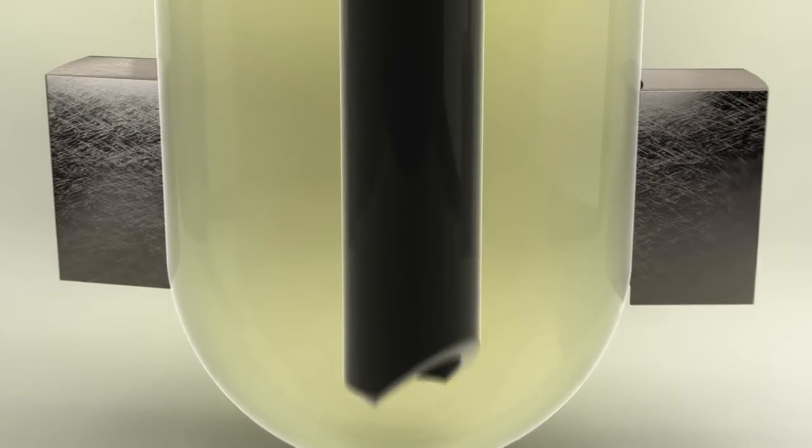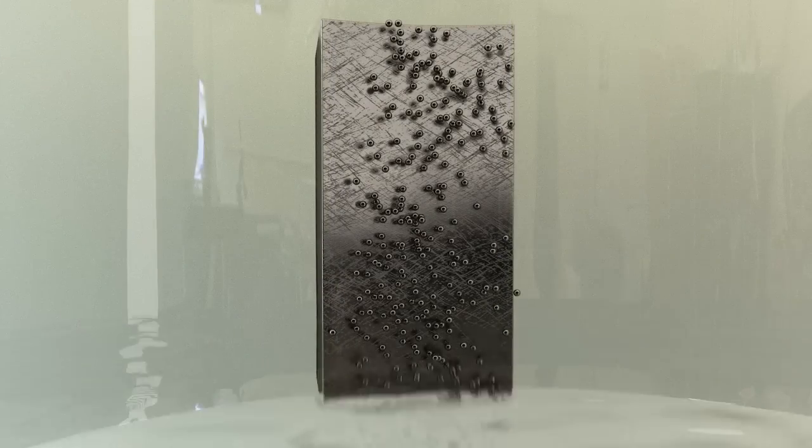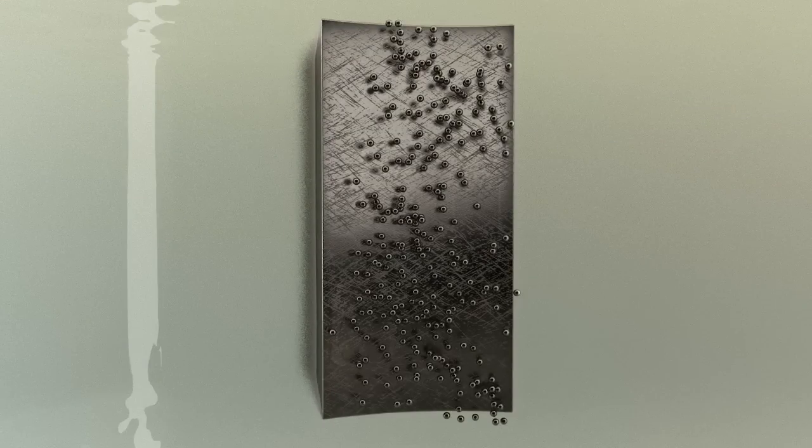During a series of washings, all potential inhibitory compounds and other debris are washed away, leaving only purified target in the reaction tube.